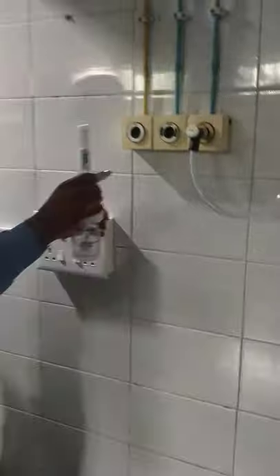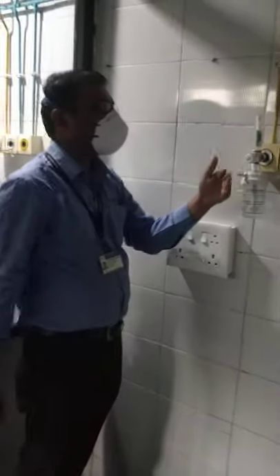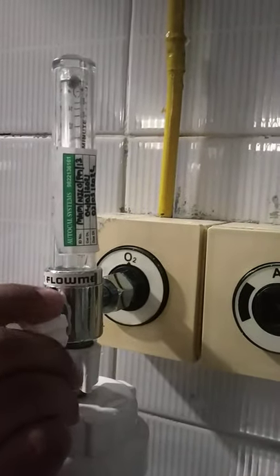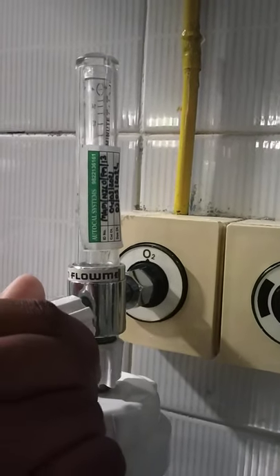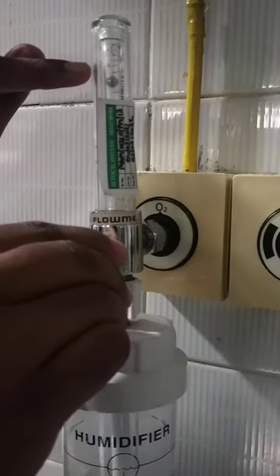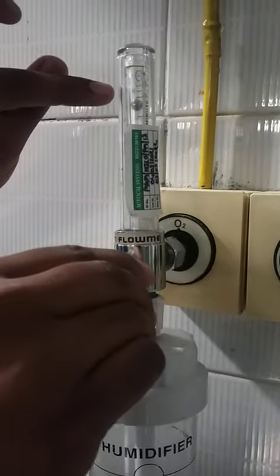Fill it properly and fix it in. This is the fixing position — it will deliver oxygen to the patient. You can adjust the flow using this knob. Observe the ball indicator — according to the ball position, you can adjust the flow accordingly.